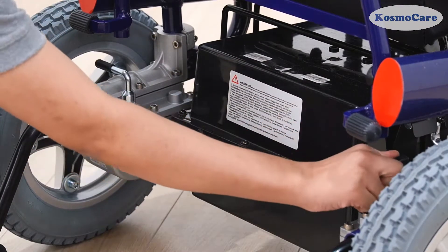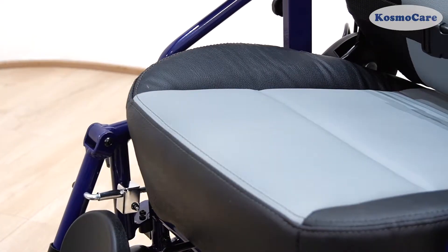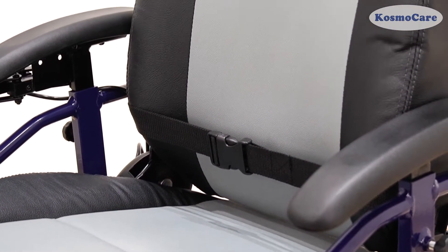The gear lever helps you switch between auto and manual mode. The plush padded captain seat is anatomically contoured and offers great comfort with its manual recline function.